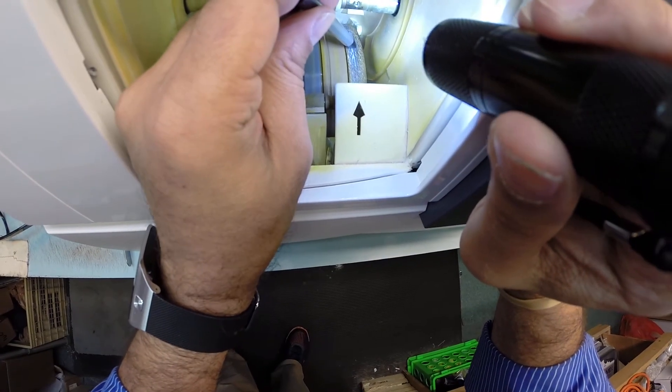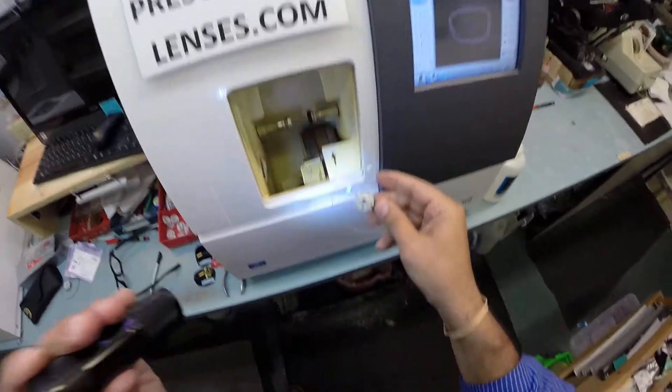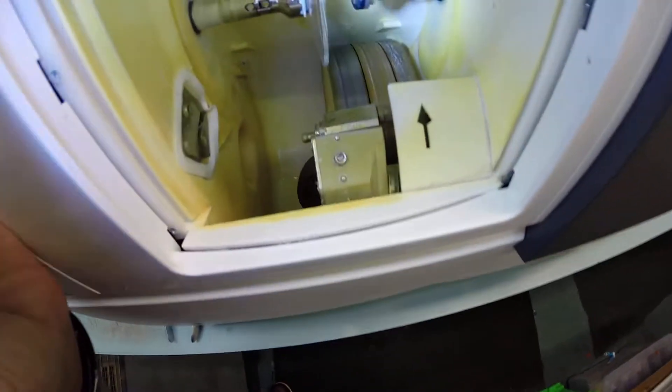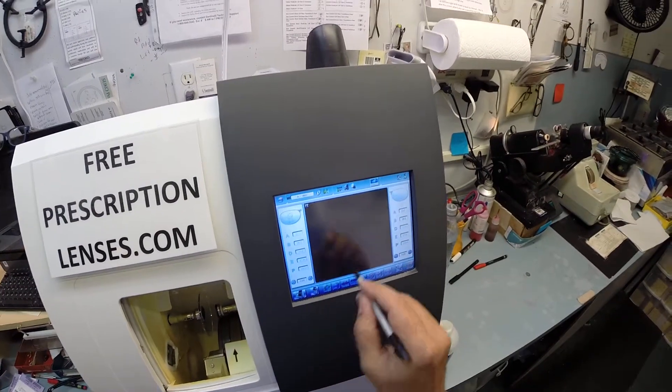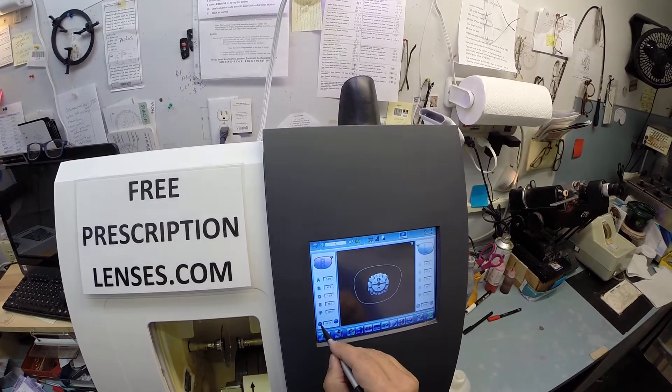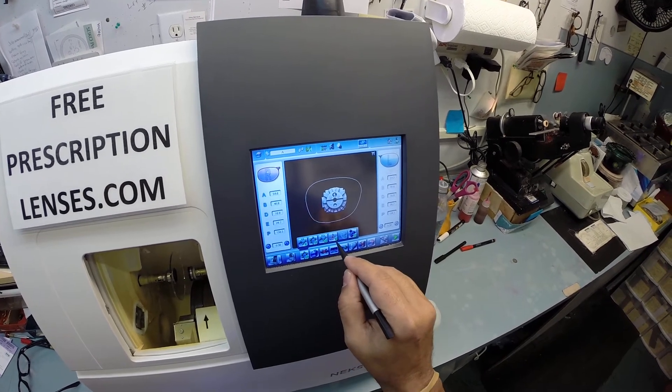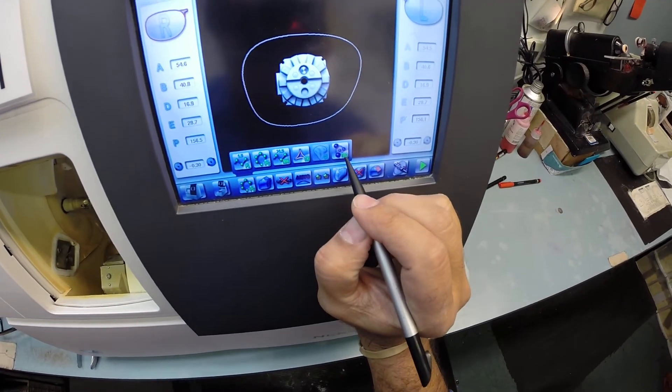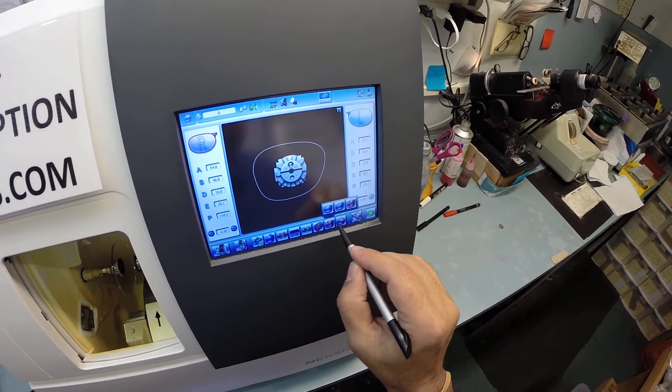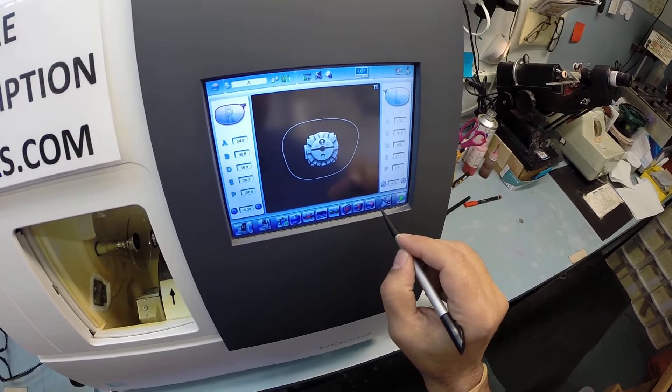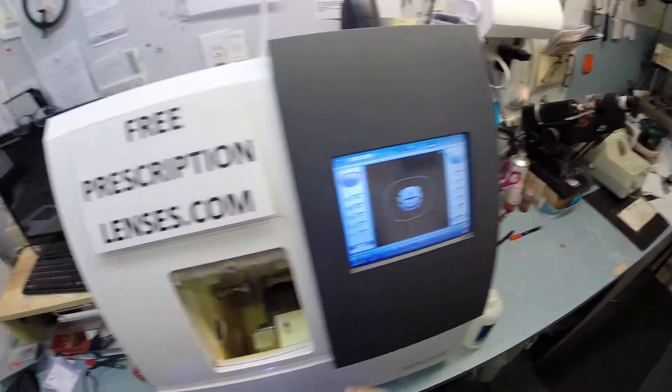The actual cutting wheel is over here on the far right hand side. It acts like a heavy grit sandpaper to grind away your lens material. This wheel in the center with that channel, that little valley, that's what's going to put the bevel onto the lens so it stays inside the bevel of the frame. Now the magnet, that little silver magnet right there, it's going to do its job a second time. It's going to hold it in place into the chuck, or as I like to call it the Charles, because I don't know the machine well enough to call it chuck. I'm going to wake up the computer. That is the shape of the lens cut. I know from experience the bevel is deeper on this frame than the 52 that I wear. These are polycarbonate lenses. I'm only going to put a bevel onto the rear surface, the concave surface of the lens. I'm going to hit the green button.